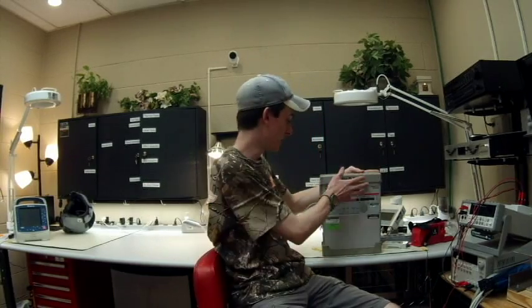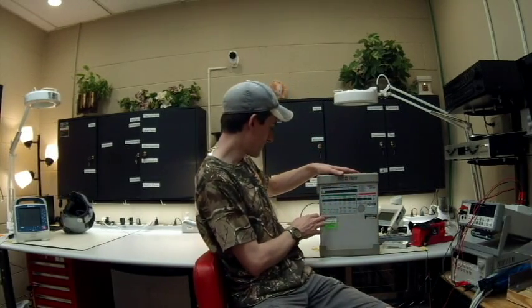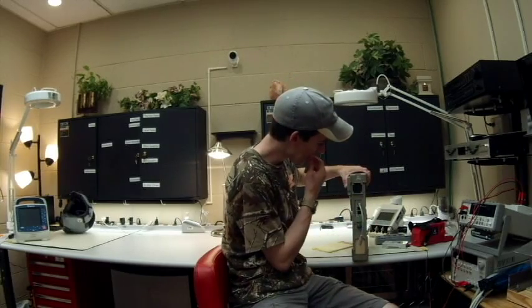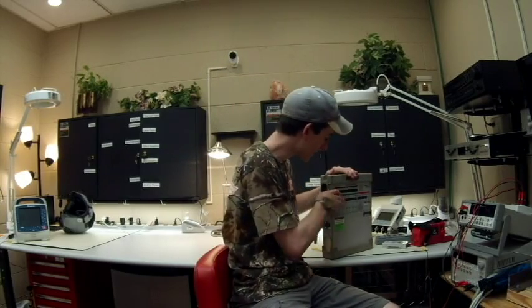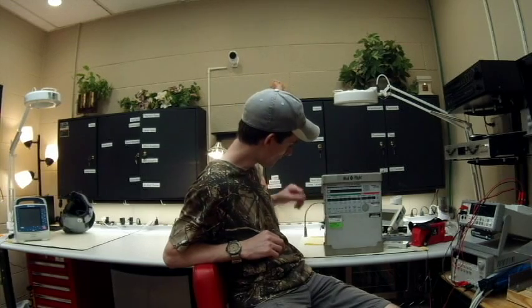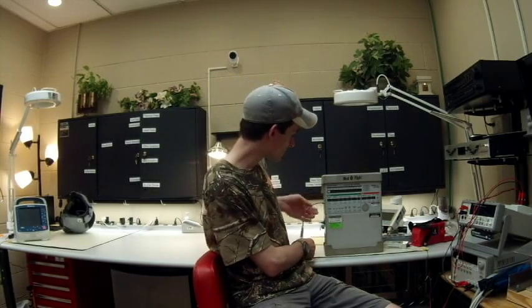There are really no negatives to the LTV 1000. It's about eight or nine pounds and I don't think there's any plastic on it — the whole thing is metal, with some rubber piecing up top. The one thing I notice breaking a lot is this fan drawer, which is plastic. Sometimes they'll knock it on an O2 regulator and it'll smash in, the fan gets stuck, and that causes a failure. There's also this pigtail power-in connector that will get worn down — the locking snap mechanism wears out from overuse.